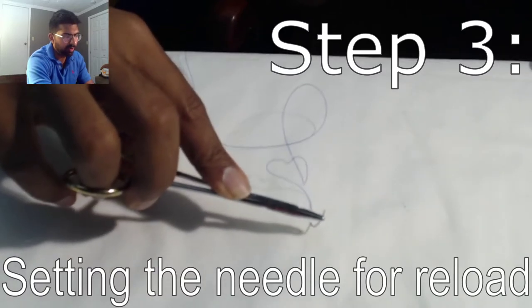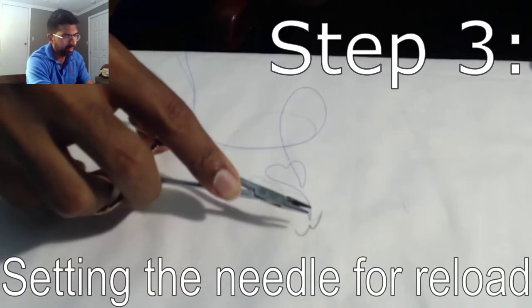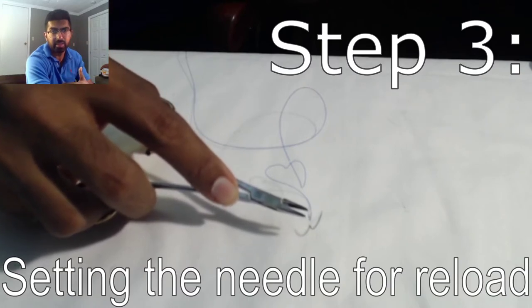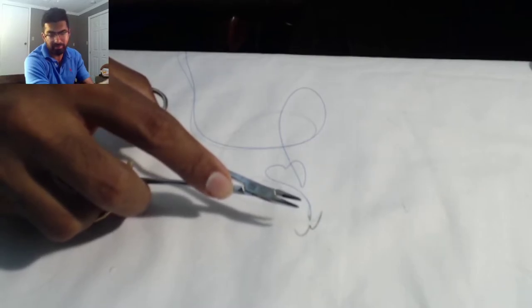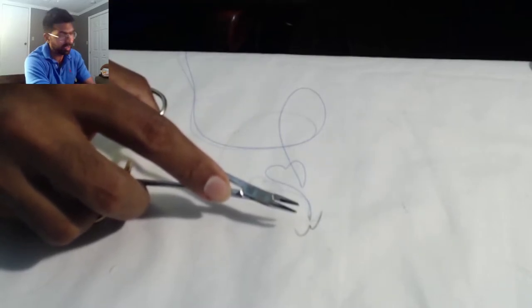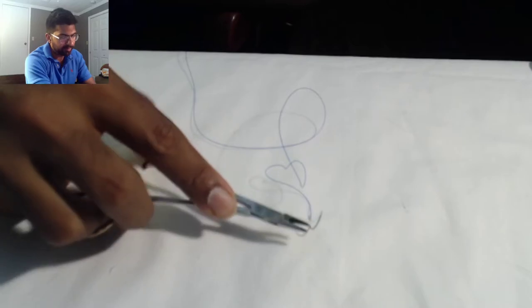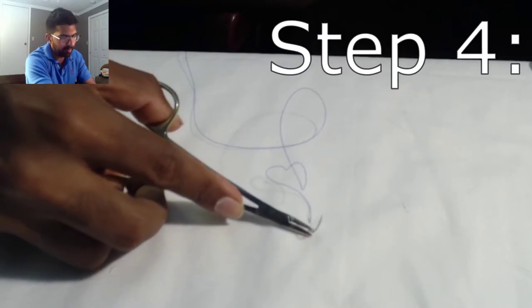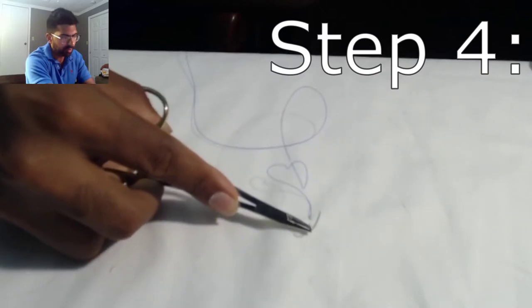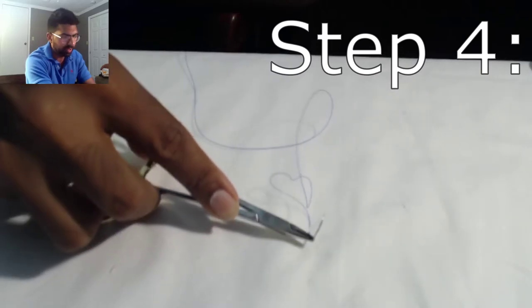My goal here is to get the needle where I want it to get loaded because this is going to build to our needle manipulation lecture, which is coming up very soon, and I think you guys will be very excited for that. So after the pronation, I'm going to supinate a little bit, grab at 50%, click on, and I'm just going to pronate the needle.